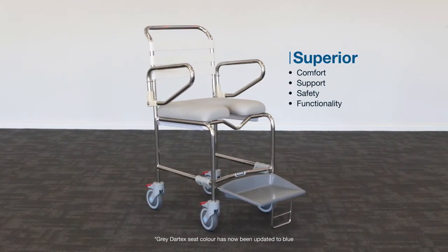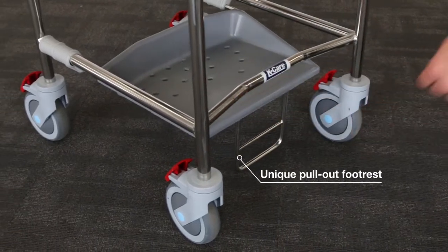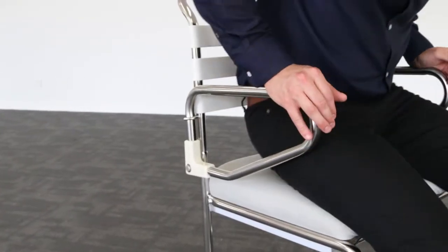The sliding footplate model features a unique pullout footrest style allowing for unobtrusive transfers.